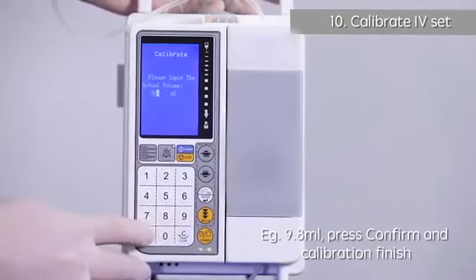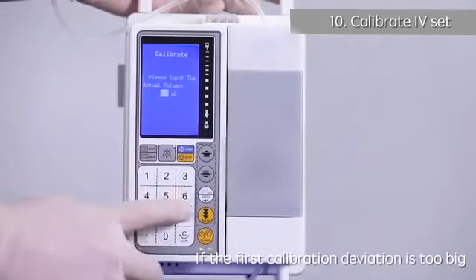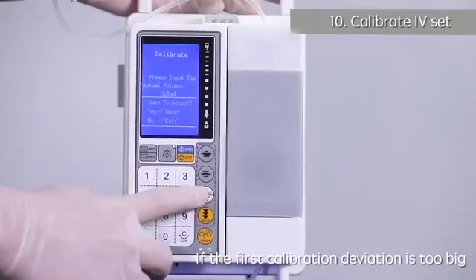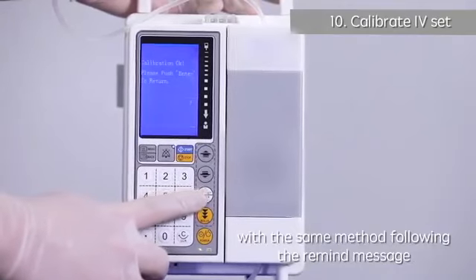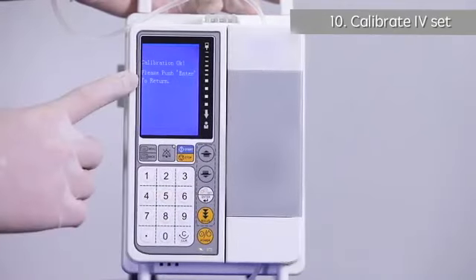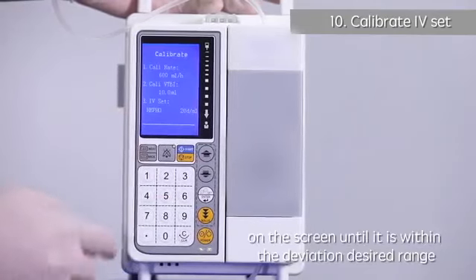Press Confirm and calibration finishes. If the first calibration deviation is too big, please do the calibration 1 to 2 more times with the same method, following the reminder message on the screen, until it is within the desired deviation range.